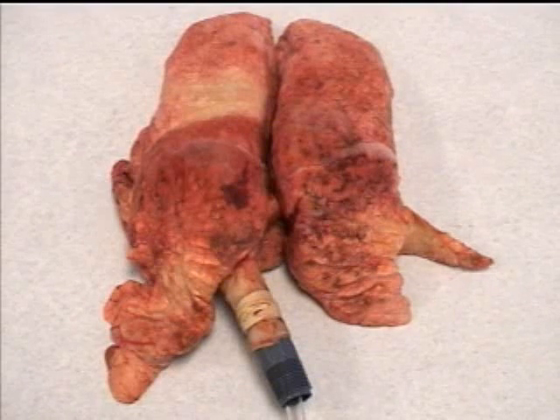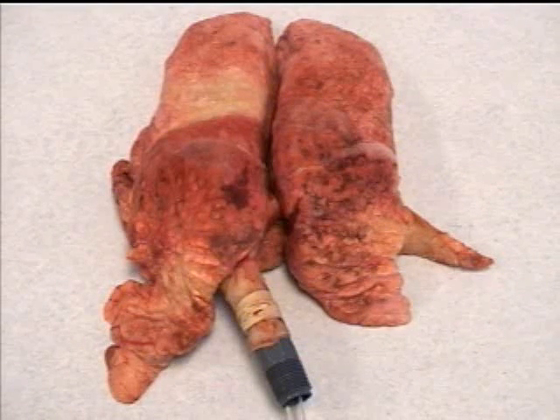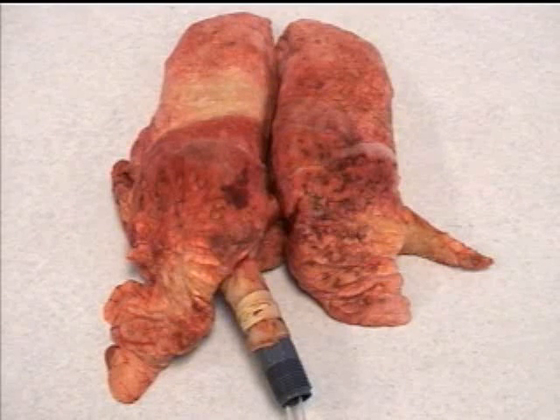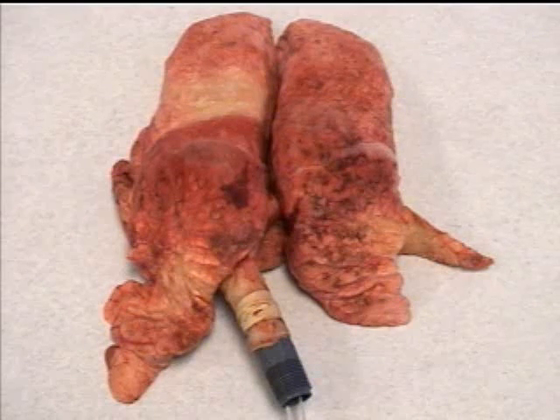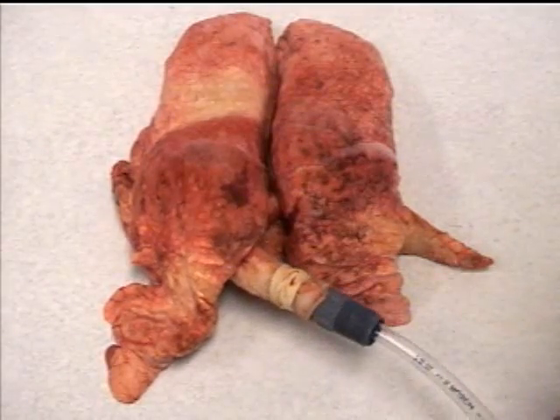We're going to videotape the set of pig lungs, which are now completely de-recruited, being ventilated by the Percussionaire VDR4. So I'm going to put them up.